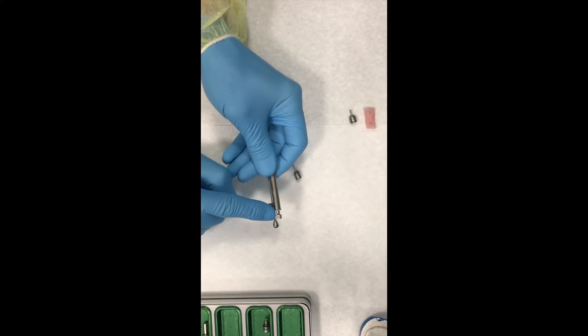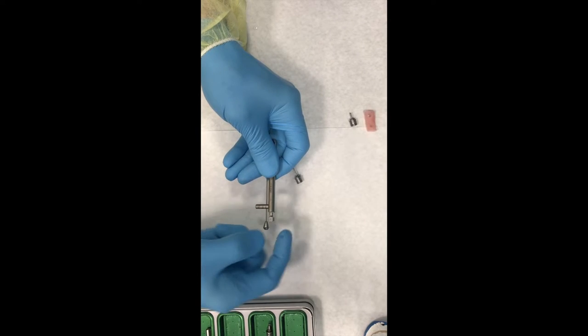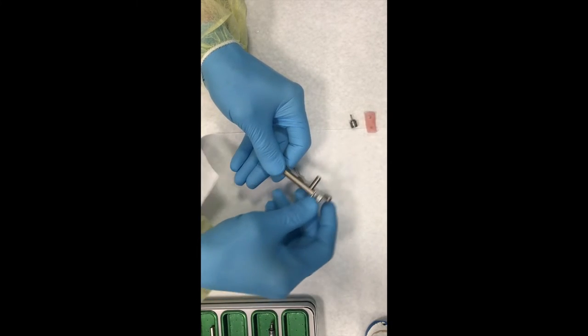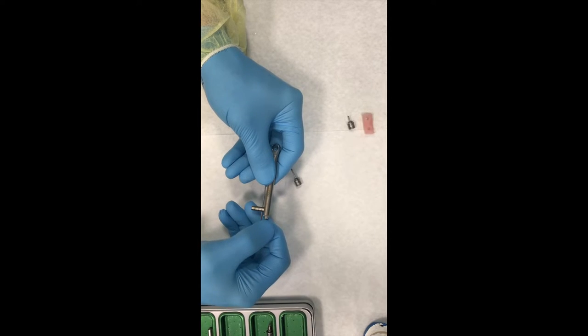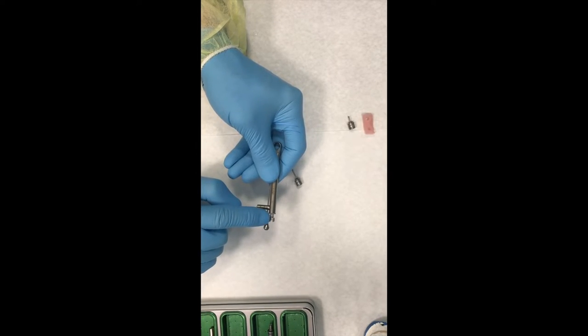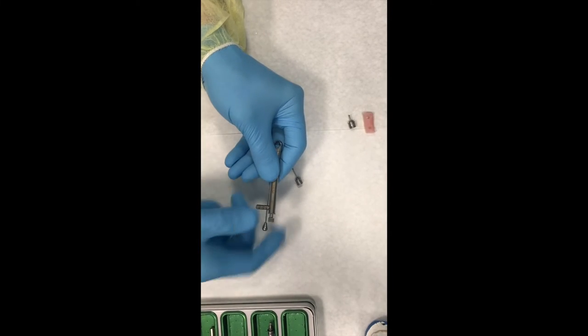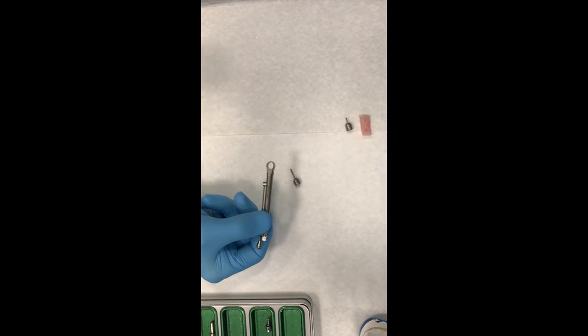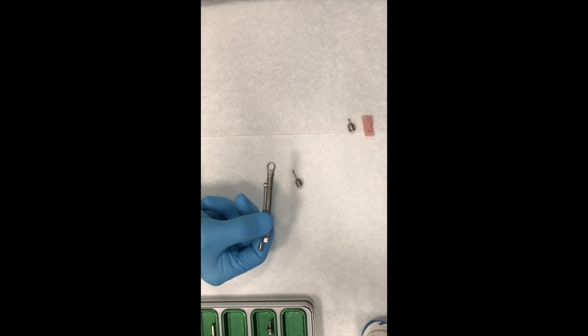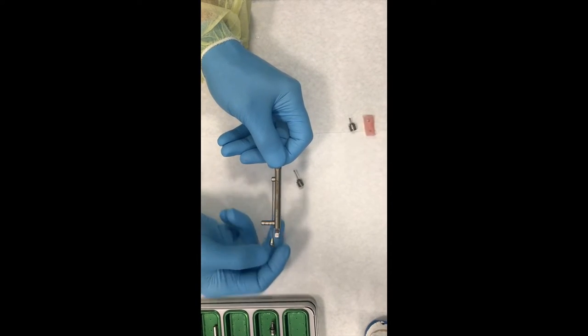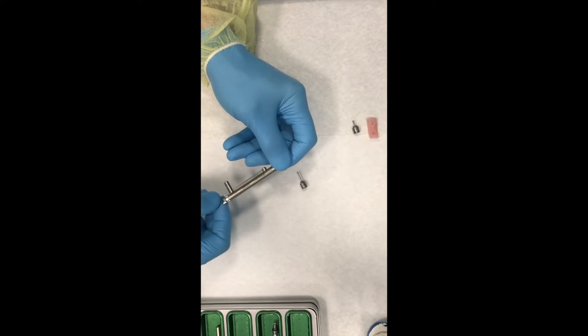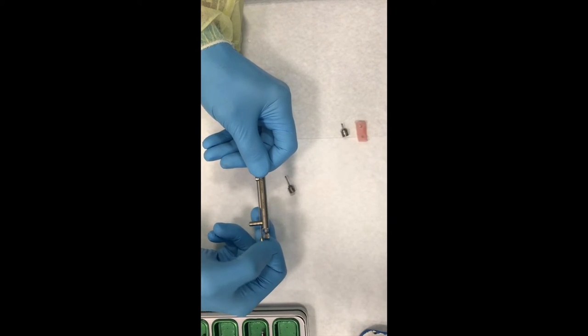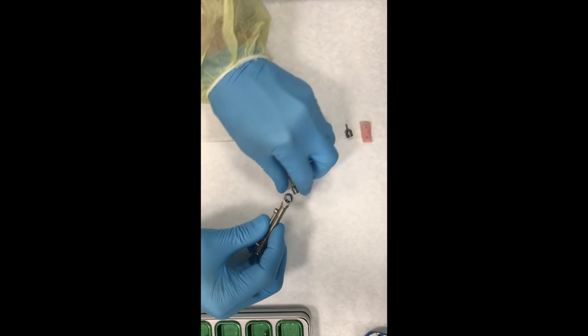Now, if you're going to be tightening, you'd want to have the arrow facing towards the direction in which you're pulling. If you're going to be loosening, you can either flip the torque wrench over this way, and do it this direction. Or you could just pull this out on this little spring and flip it around the other direction. Just remember this. The direction of the arrow is the direction in which the little door stopper here is engaging the driver, and it has nothing to do with loosening or tightening. Loosening and tightening has entirely to do with clockwise versus counterclockwise. So counterclockwise is loosening, clockwise is tightening. Maybe you've heard righty tighty, lefty loosey. So it's a good way to remember.